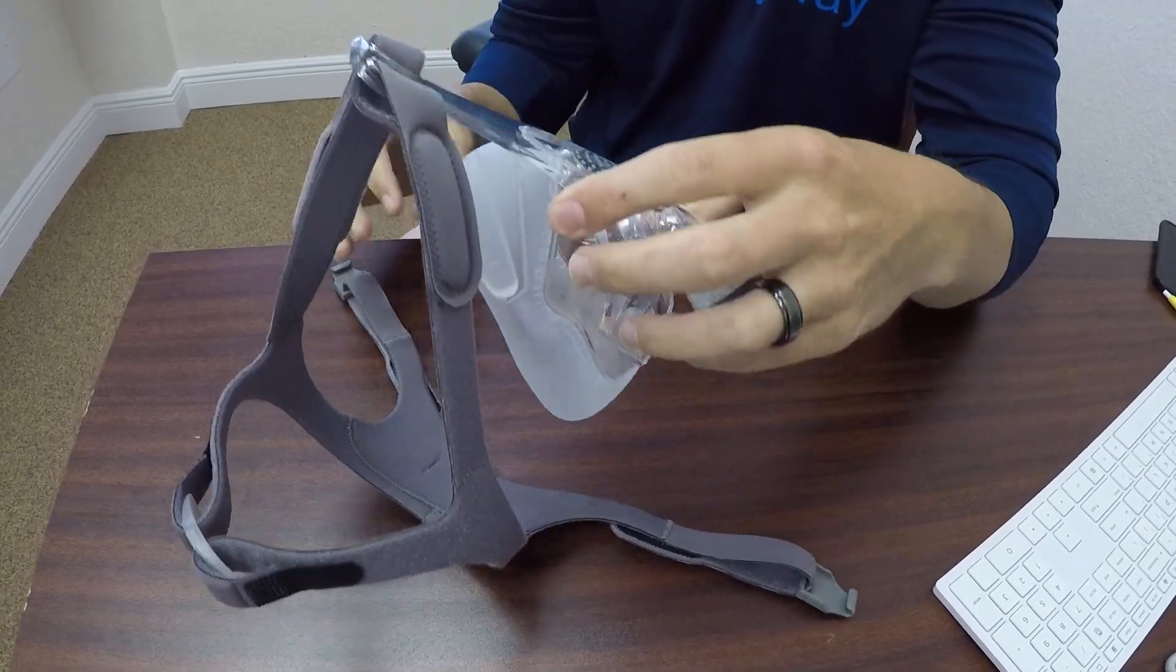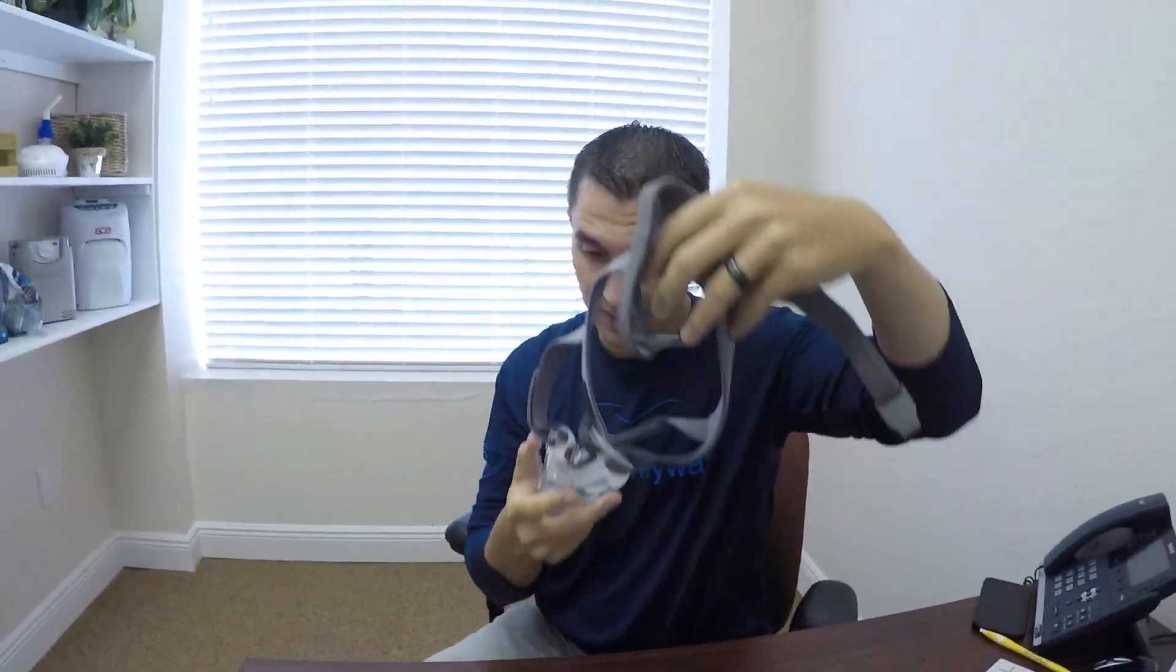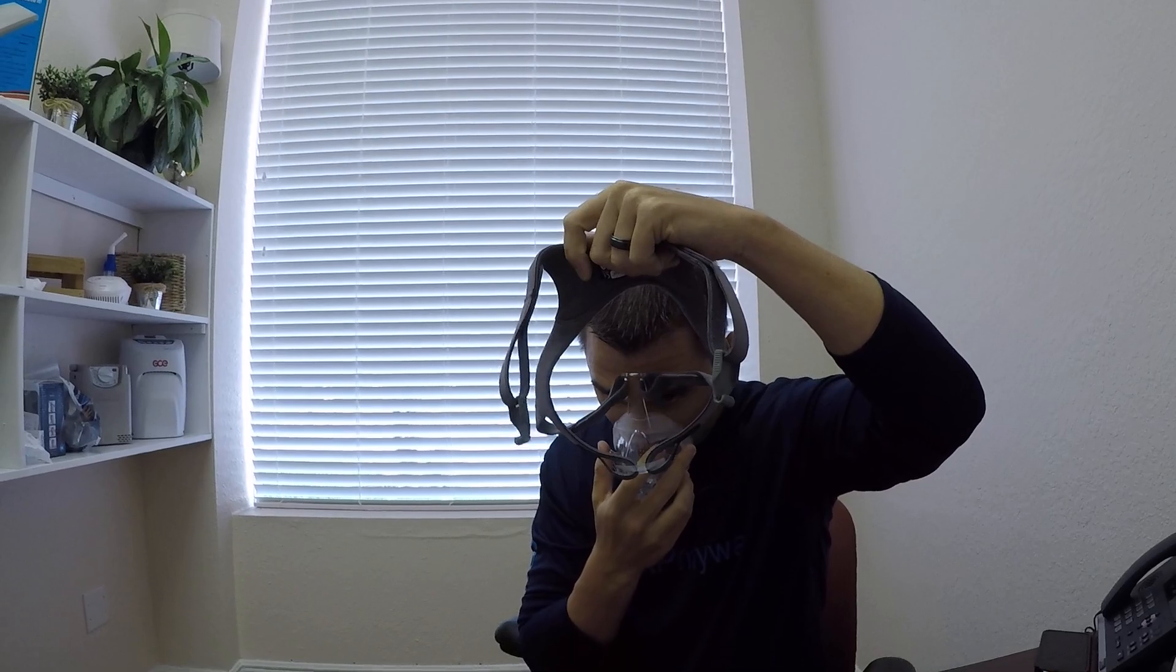Okay, so let's try it on here, let you hear what it sounds like and give you a little overview of how the exhalation ports work. I did say this one's a little bit big for me, so hopefully it'll fit well. We'll hook it up just like that.